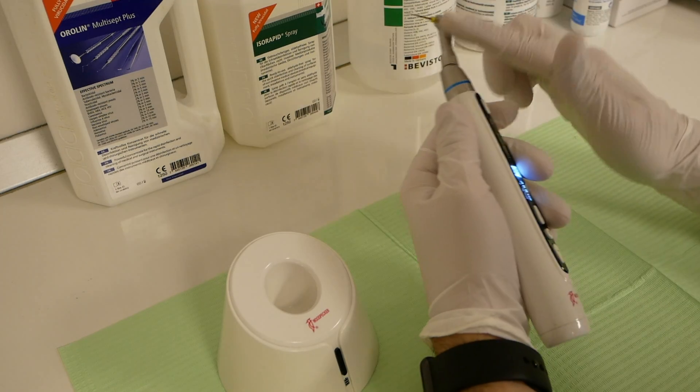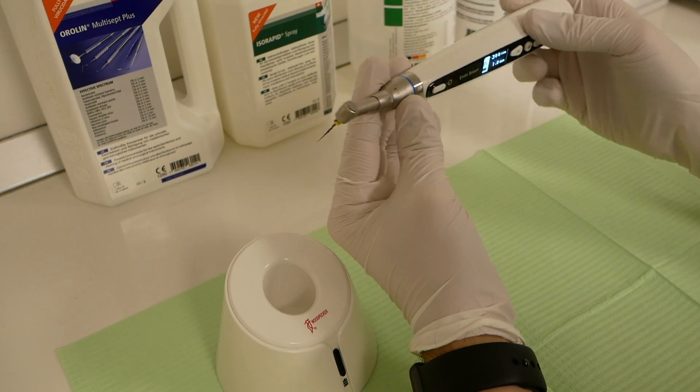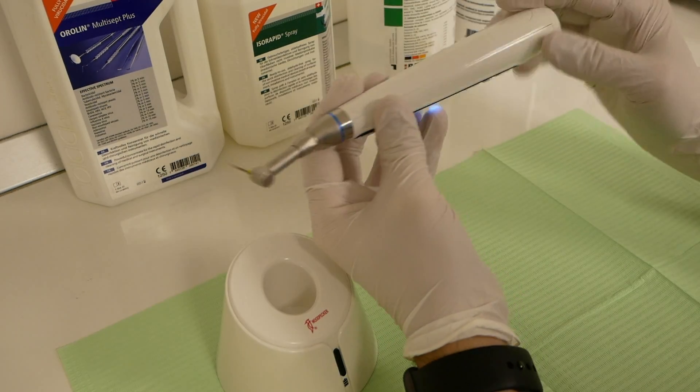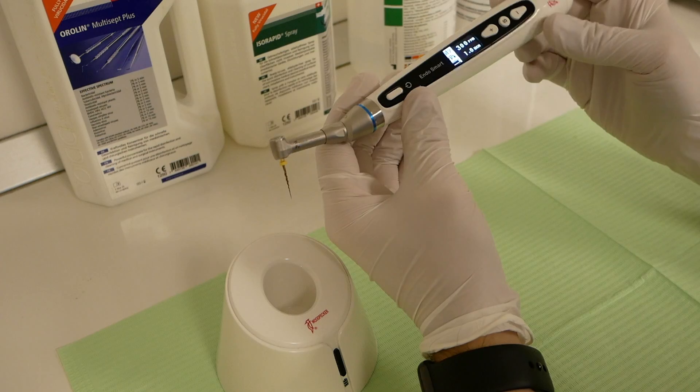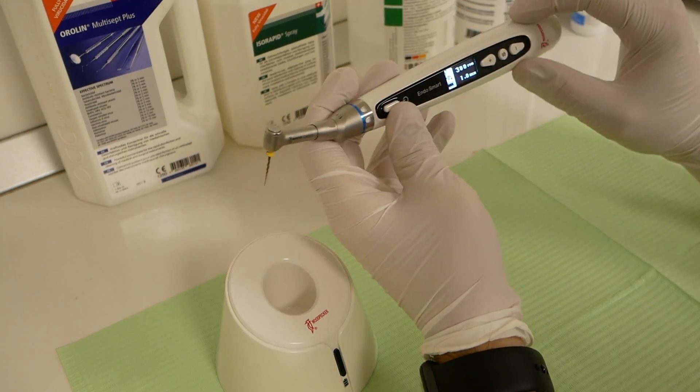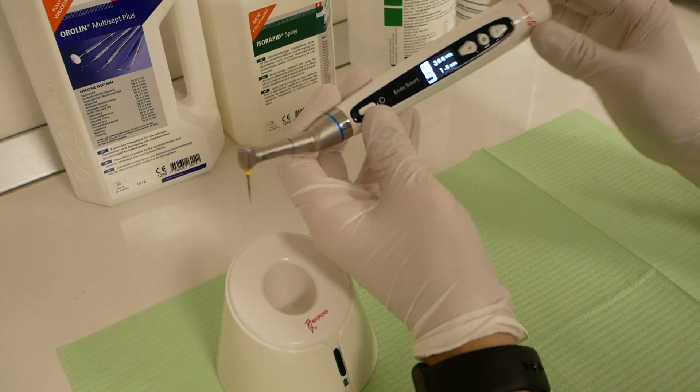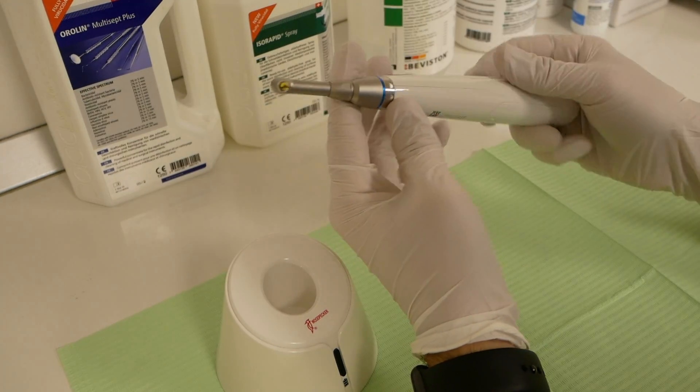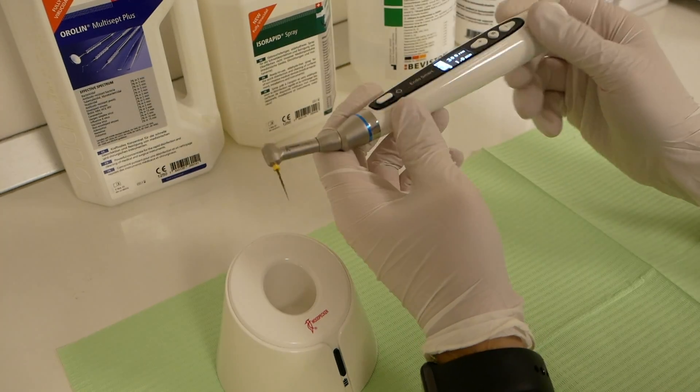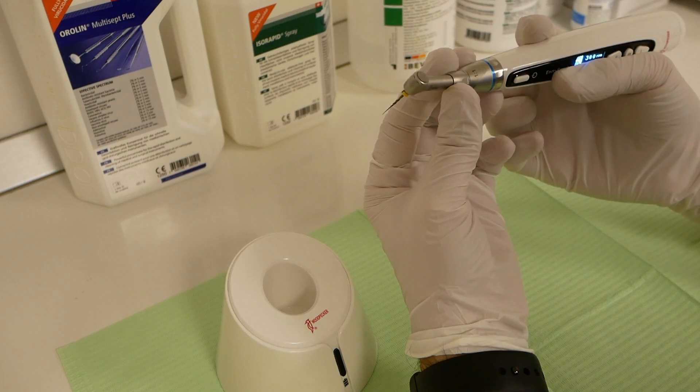Of course, the top part, the metallic part, is autoclavable. The bottom part is made from high-quality resistant plastic, so you can disinfect it without any issues, without damaging the ABS plastic.